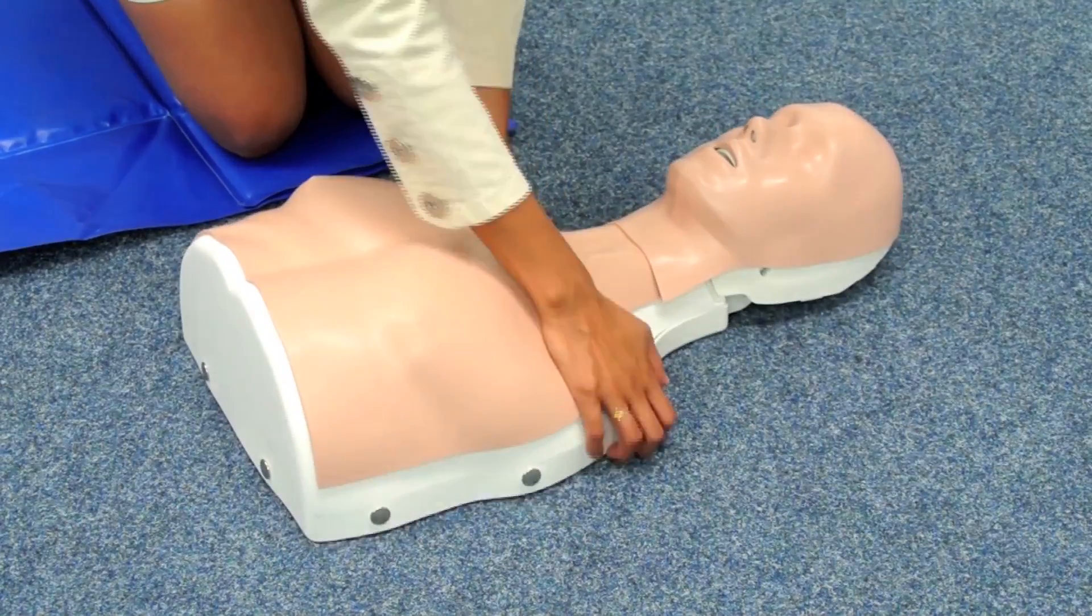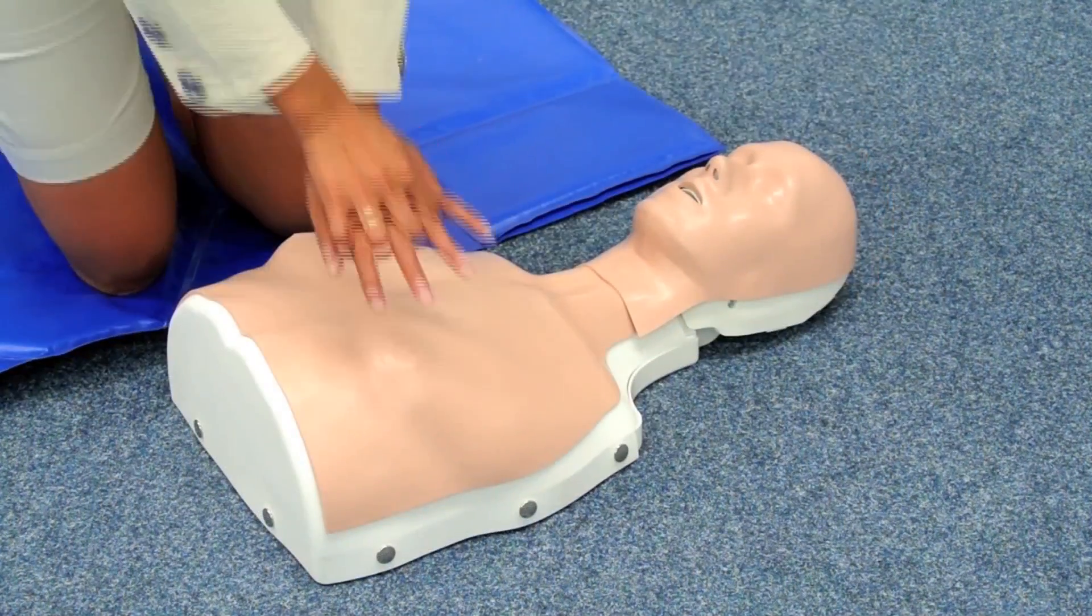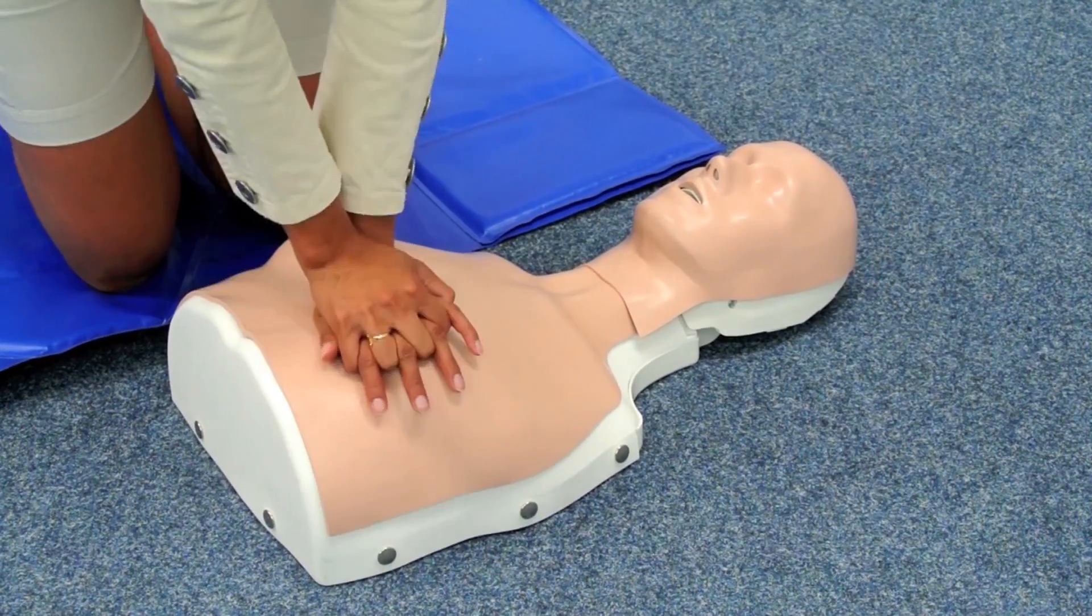With BasicBilly, you can teach basic CPR, like chest compression and mouth-to-mouth ventilation.